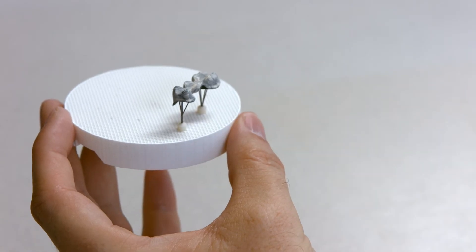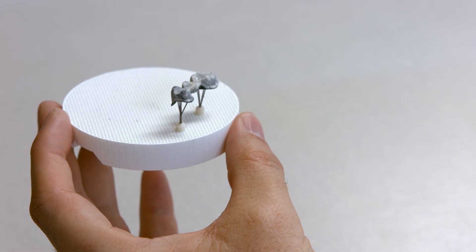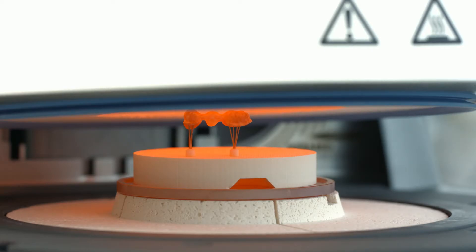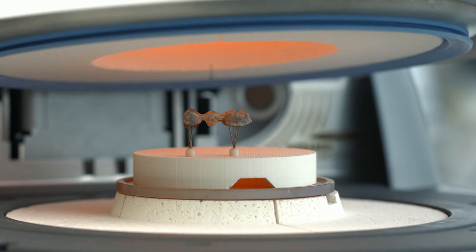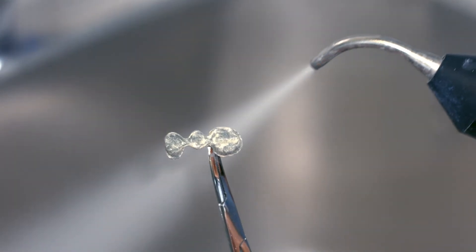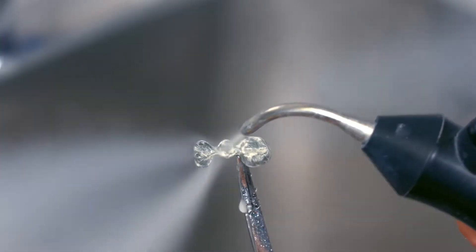At this stage, it's important to ensure that the restoration is adequately supported. The first opaquer layer may now be fired using the corresponding firing parameters. Subsequently, the framework should be allowed to cool.